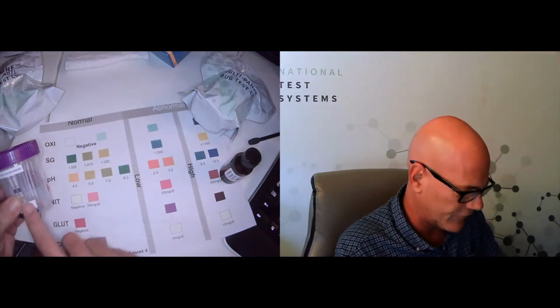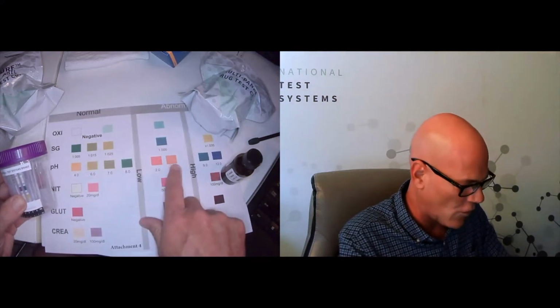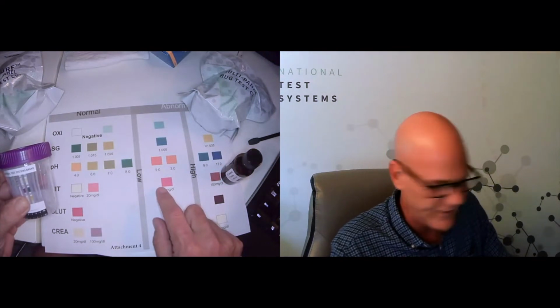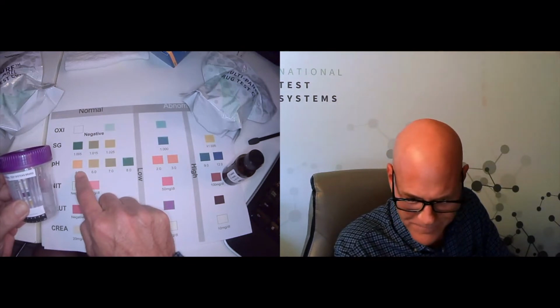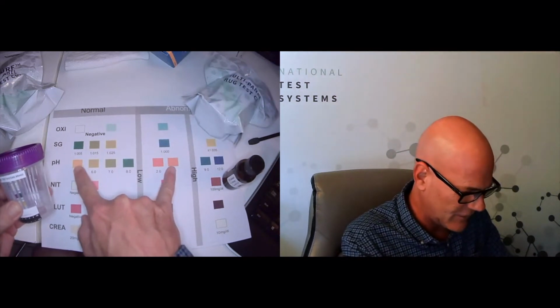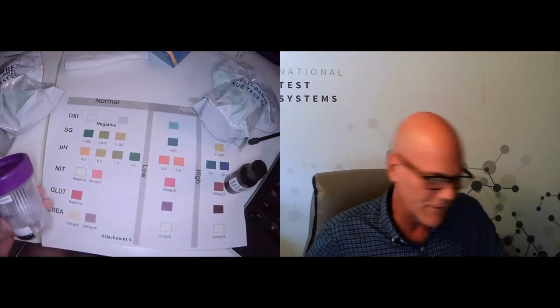And then lastly on our list, we have the pH. And this color to me looks like it's somewhere on the low end. It's definitely more golden than orange or red. And we refer to our chart and we see that the pH is low abnormal. And actually, I don't know if I agree. Again, to my eyes, it looks closer to 4 than 3. But again, this is just a horrible printout from my printer. So we'll have to take that one with a grain of salt.